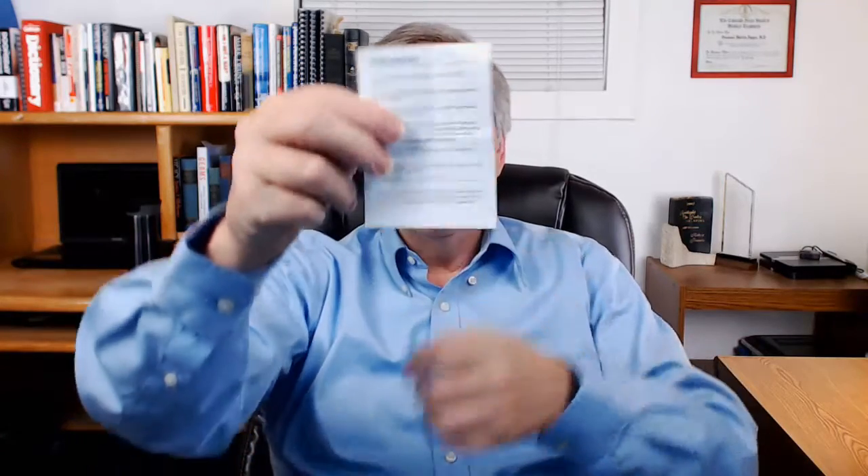The AirSnore is made in the UK, and if you live in the US and order one, it does take several weeks for shipping. Here are the instructions, which contain steps on doing the custom mold. I'll show you how to do that later in the video.